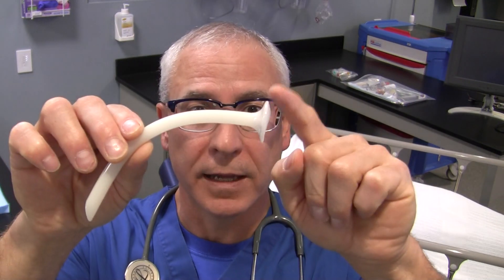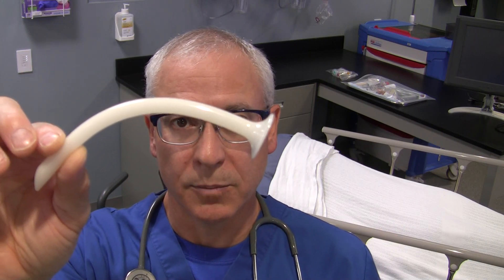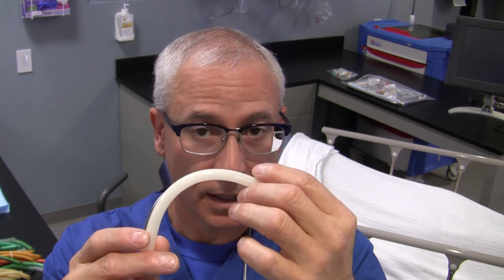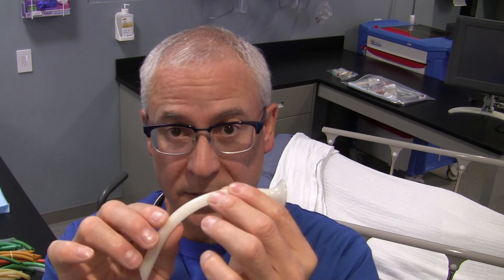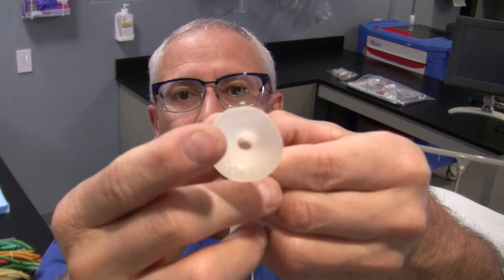Now the parts of the NPA are the flange right over here, the body, and the distal end. There is no bite block with the nasopharyngeal airway because it goes in through the patient's external nares, nasal cavity, pharynx, and then winds up in the hypopharyngeal area. So it doesn't go through the mouth, so we don't need to worry about a bite block in the design of the NPA. The NPA is also made of a fairly pliable and soft material so it can bend to the contours of the nasal cavity and pharynx. It's also made of rigid enough material so that when the patient takes a big breath in, it doesn't collapse as it softens up due to body heat.